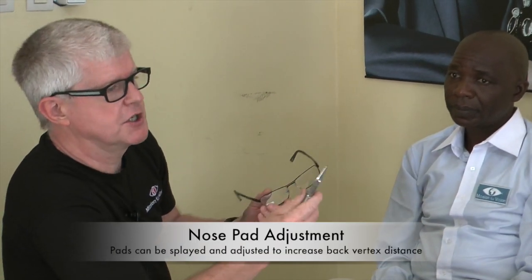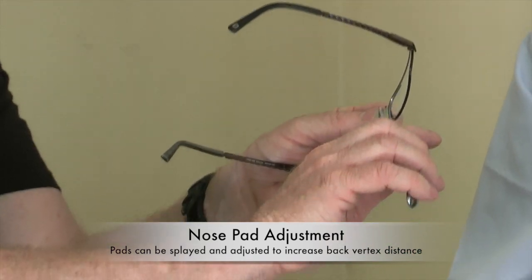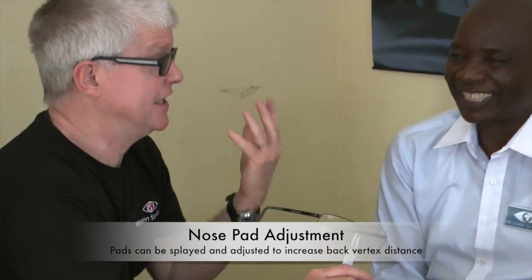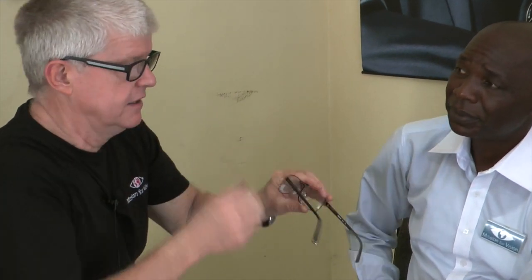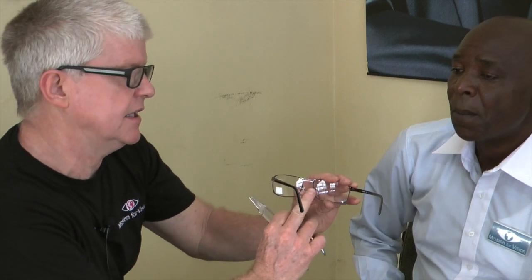The other thing we were looking at are the nose pads. We have a special set of pliers for the nose pads which have got a flat piece and a recess — that recessed bit fits over the back of the pad. Now, in Africa your nose is different to the nose in England. My nose is very steep but yours is much flatter, so you need to adjust the frame to fit your nose. With these pads on the metal frames, you can bring the pads out so that they sit further away from the face — for some people who've got long eyelashes, you might need to do that.